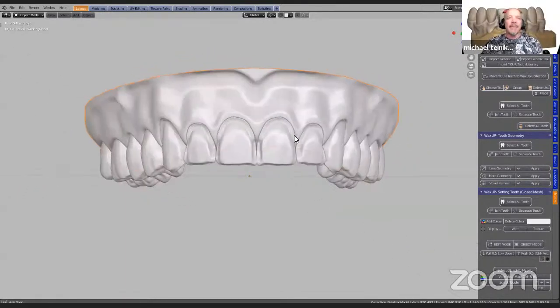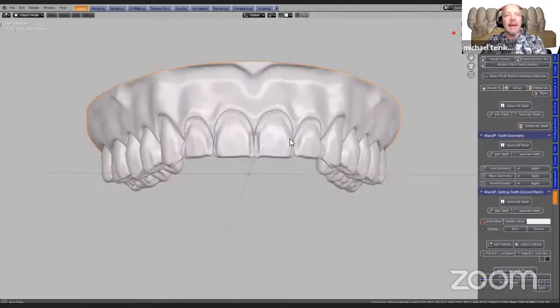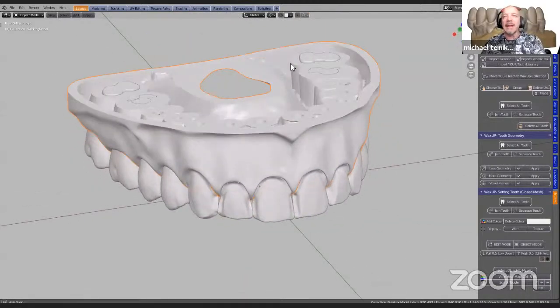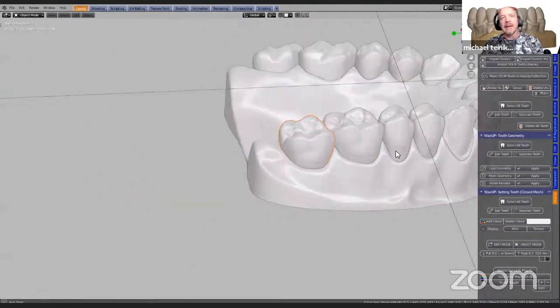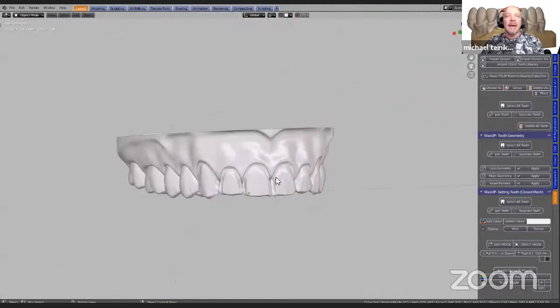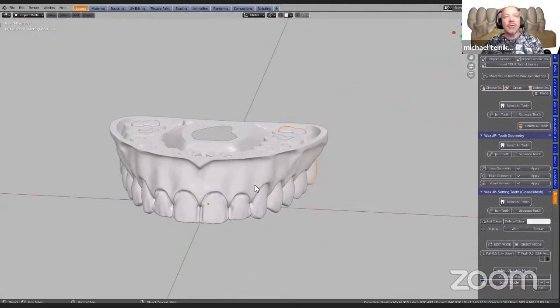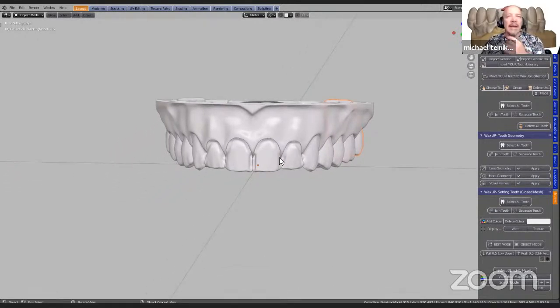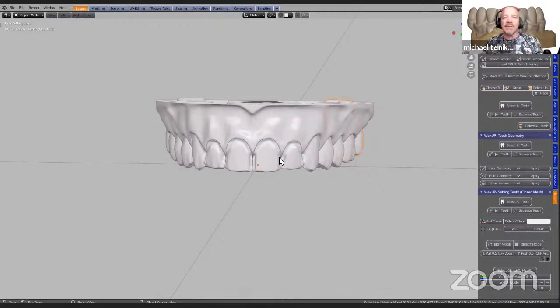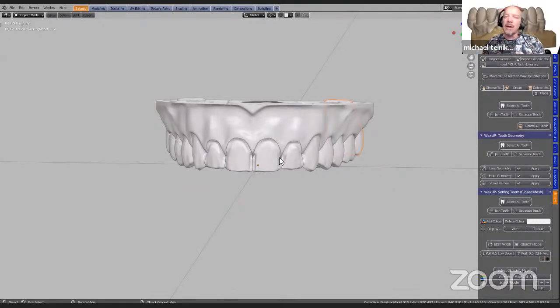So I've been sent this model and it's not a Blender for Dental model — it's been made in a different software. It's got each and every one as a die on the inside, so it's a nice study model. I've been asked to create some veneers on this model. I'm not going to go through each and every step because a lot of the steps are the same. I have saved a few files and we're going to do a few steps, then open up the next file.